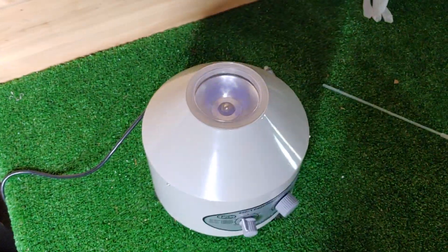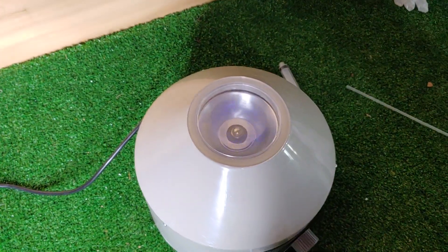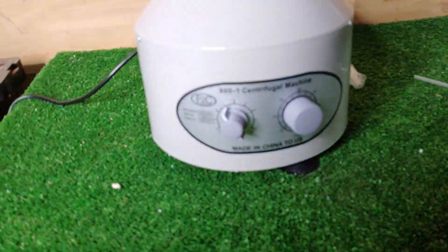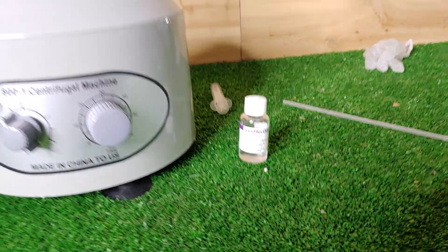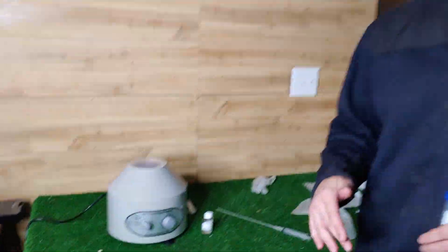The centrifuge is about $70–$80, but it's definitely worth it. Looks like we've got about three minutes left and I'll show you what this looks like. This is the way to do it — I love doing it for both in-house breedings and for shipping the dog semen out. It makes a big, big difference.